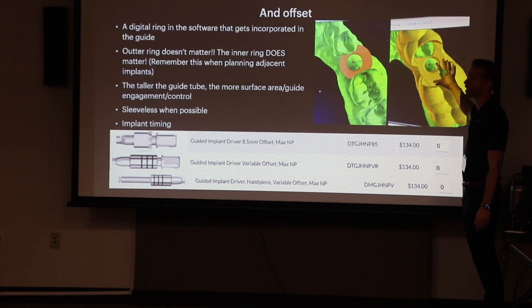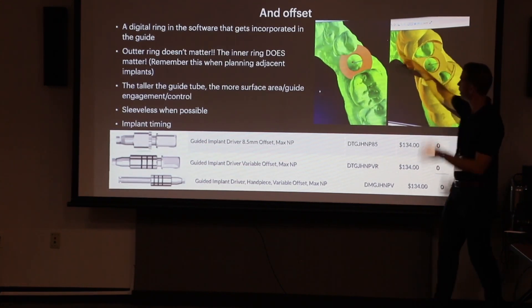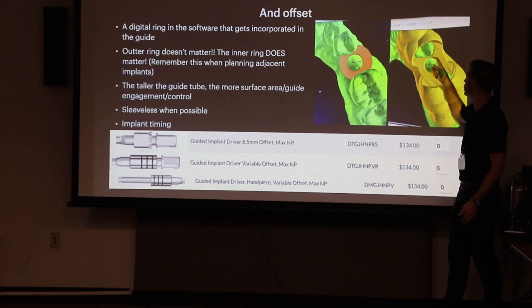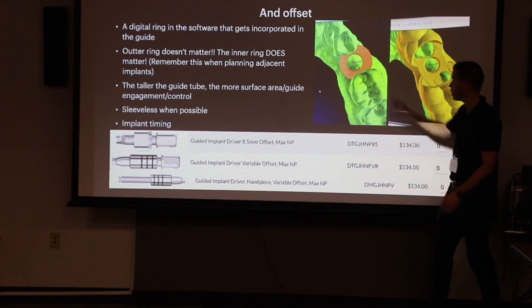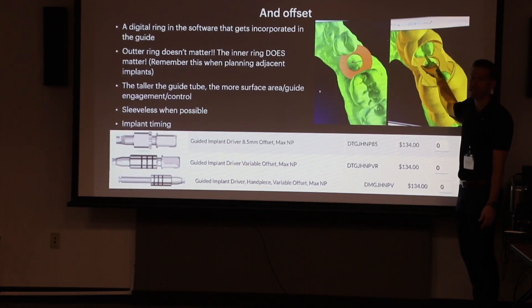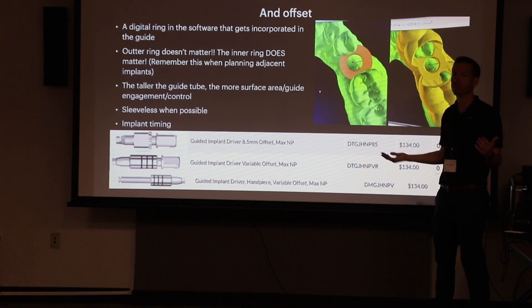The software takes a guide tube, builds it into a snapping piece of plastic, and incorporates it with some features. The software is smart — it cuts out all the parts on the teeth and the parts hitting the gingiva, leaving just the inner core, because that's what's actually guiding our drills. If this inner portion was lying halfway into the tooth, the middle portion would be offset into the tooth. Remember: the inner portion is critical and can't be impinging on other objects, but the outer portion can.